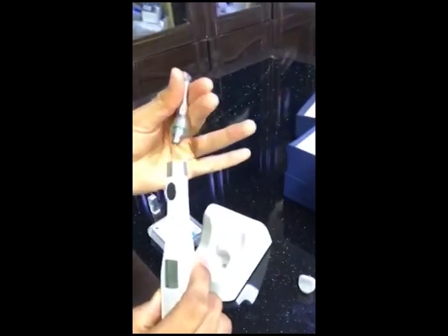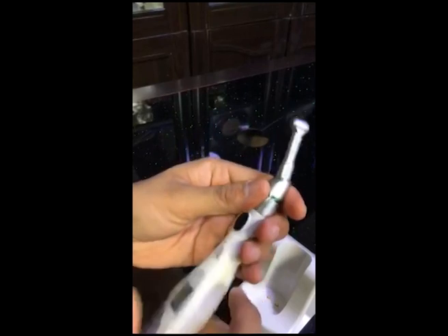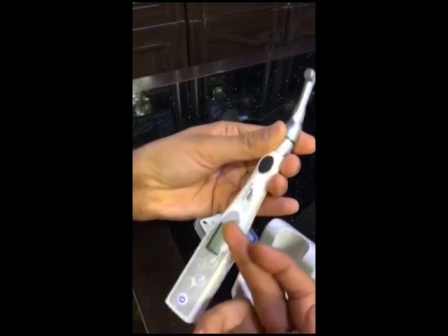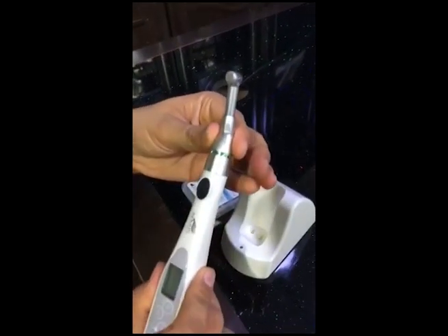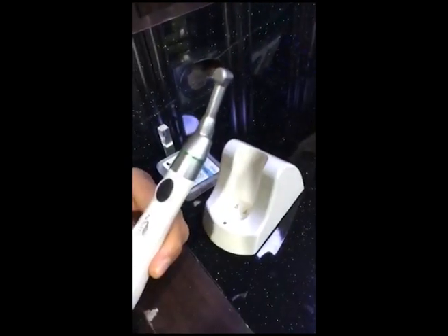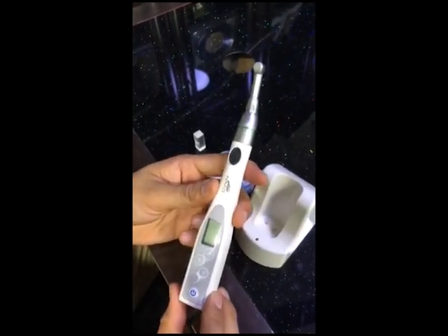This is the safety cover. We are going to take out the cover and install the handpiece. You can see these slots over here — these slots have to match. Remember, the file position is going to stay down so you can see the display and the file goes down into the patient's mouth. That's how you install it — you can see it's absolutely straight.